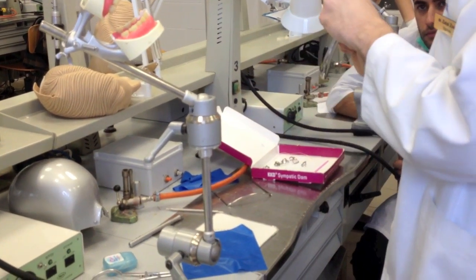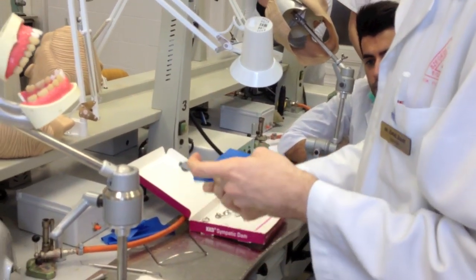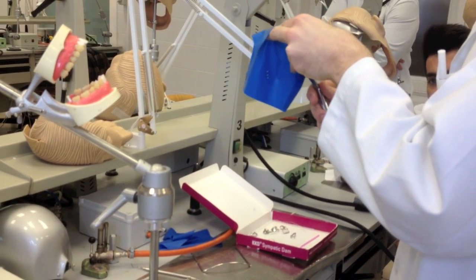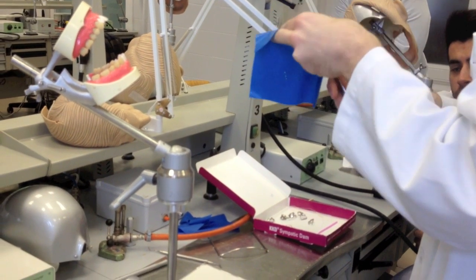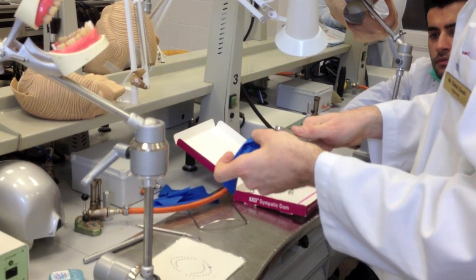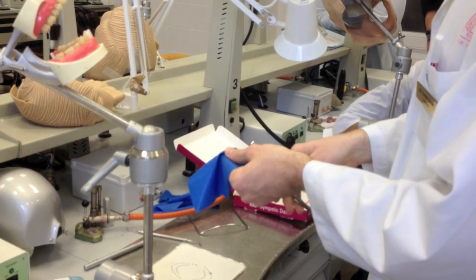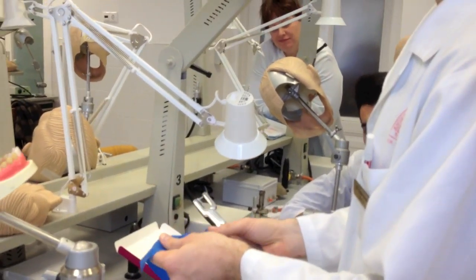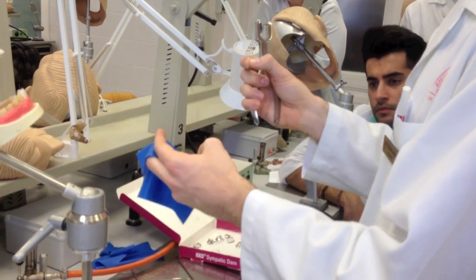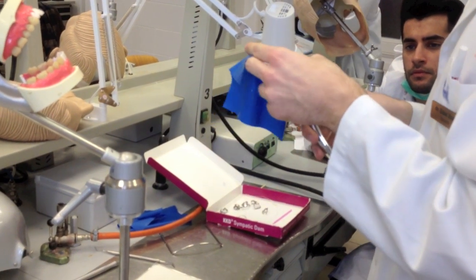The puncher. This is a small hole, medium, and big hole. In this case we have a premolar, so I will make a medium hole. Be sure that the dot is in position, then press it. Maybe it's a good idea to pull around the rubber, because if the puncher is not sharp enough, it can leave some small rubber particle in the center. And when you want to remove it, you will feel the whole rubber. I will make one side bigger for the molar.